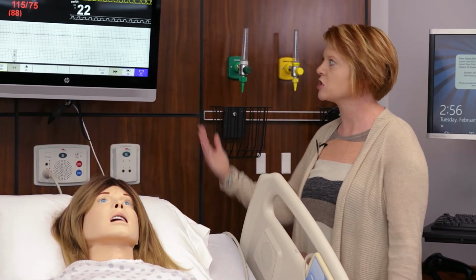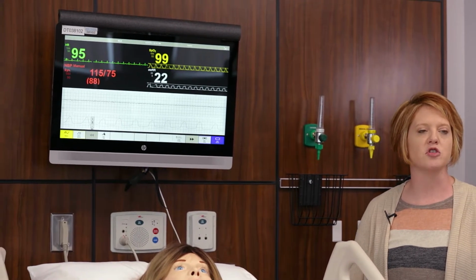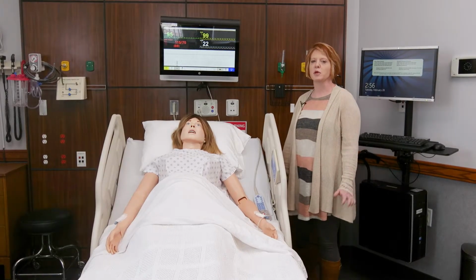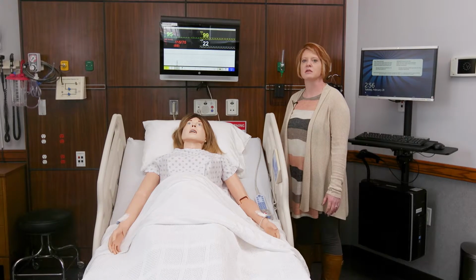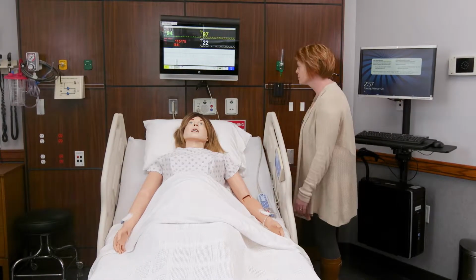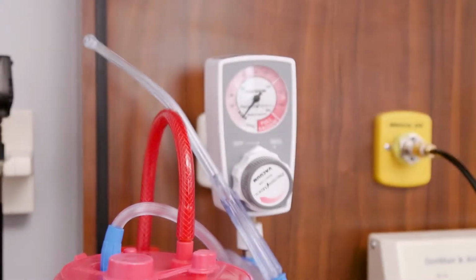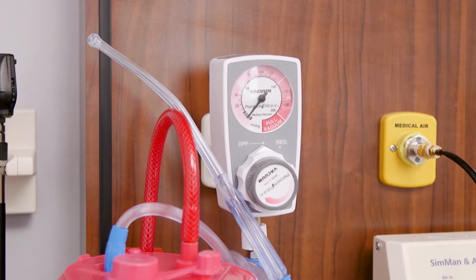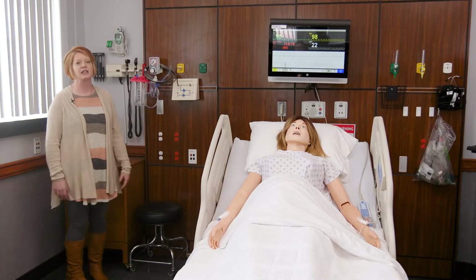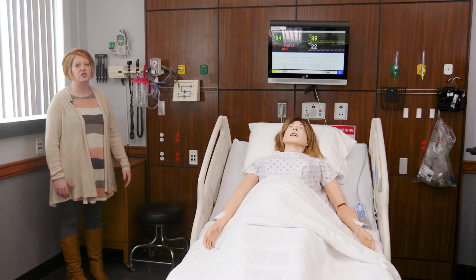We also have our patient monitor here that demonstrates the patient vital signs. That is a touch screen that you can use to get a blood pressure, pulse ox, heart rate, respiratory rate, and other information about your patient's condition. On this side of the head wall, you have your suction unit that you can actually use to suction out goo and junk from your patient's lungs. Even though you won't get anything real out of their lungs, you can still turn on the unit and use it to suction your patient.